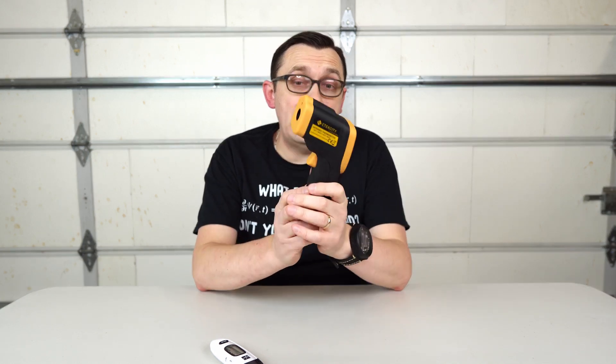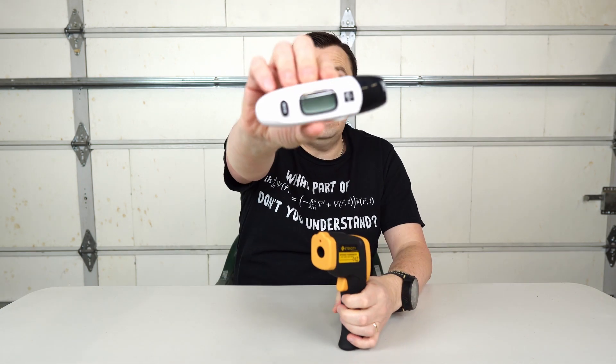Alright, in today's video I'm going to check how accurate are these thermometers in checking body temperature. I'm going to be comparing this one to the professional medical thermometer.